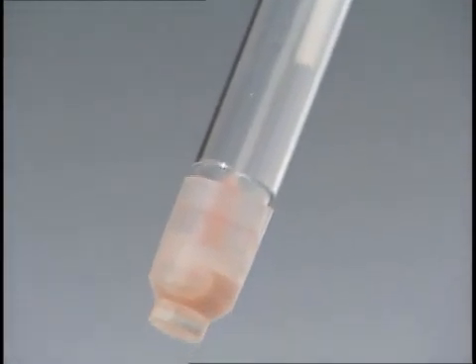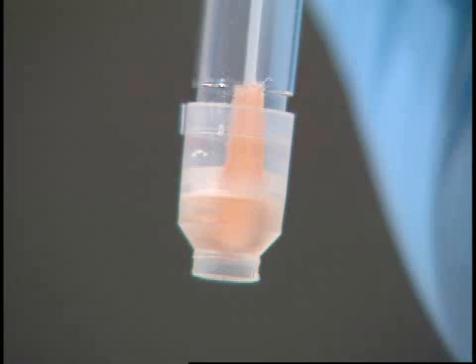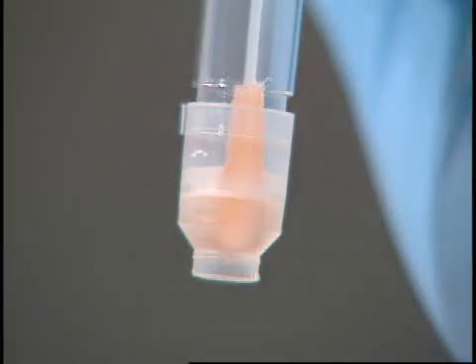Gently swing the sample reagent assembly back and forth for 10 seconds. The swab will change color, indicating that the fluorescently labeled antibody reagents have properly mixed with antigens from the specimen.